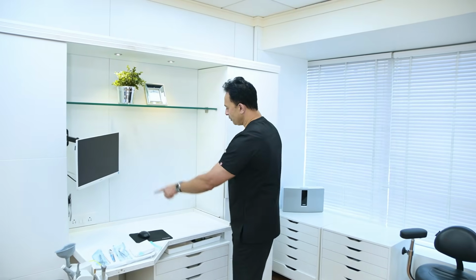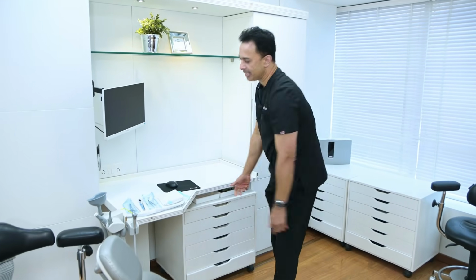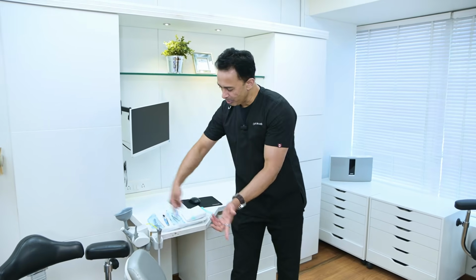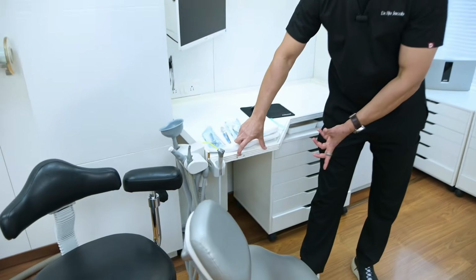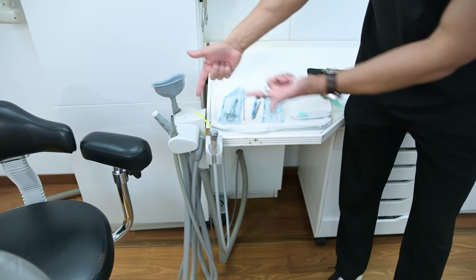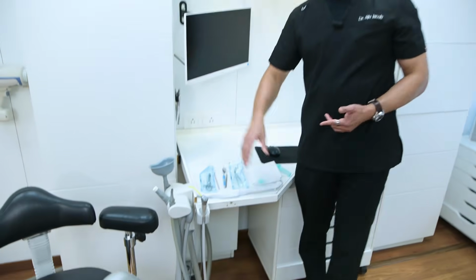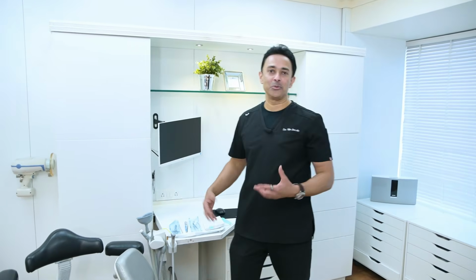And the part in between, you can ask a local carpenter to customize. These attachments are from Dur, the high vac attachments, and they can also be moved. If you see here, we tried to experiment by putting the whole unit here, and we found that wasn't very convenient. So we actually unscrewed it from here and moved it here. That's why you see those marks there. So we do a little bit of experimentation. If you're not happy with one ergonomic position, then you can always have the flexibility to move it around a little bit.